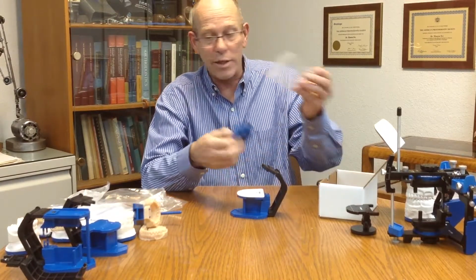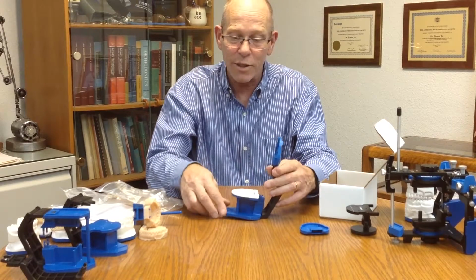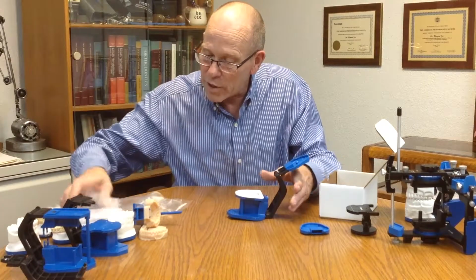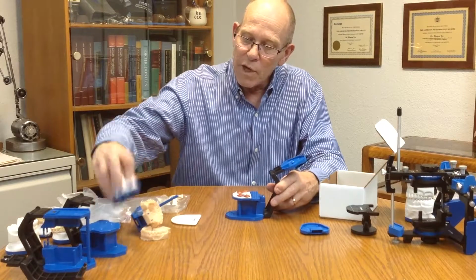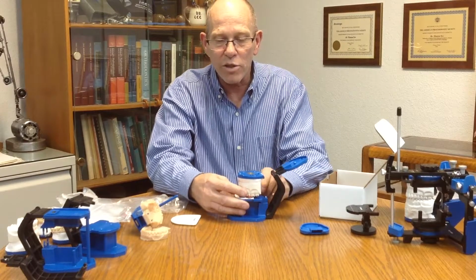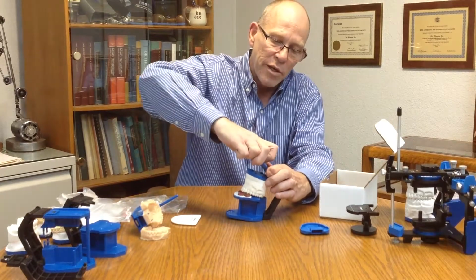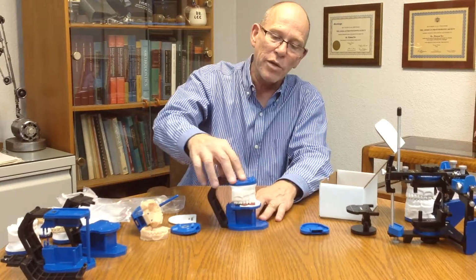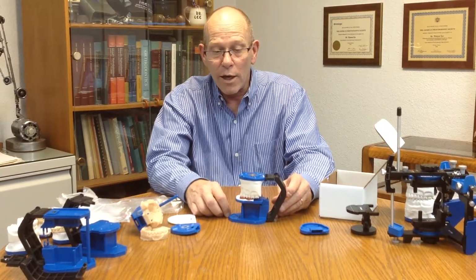The kit does come with one set of standard mounting plates that we can add to the PAL articulator. Then we can add an index tray to the COI platform, and we can just set our model in here and use that to mount conventional standard plaster models by adding plaster to the plate and the model, rotating around to make a connection that will then look like this. So you can see how we can mount standard study models directly to the PAL 2.0 articulator using the COI index tray.